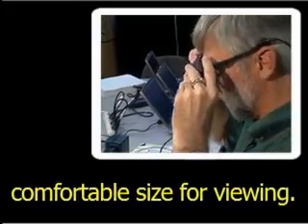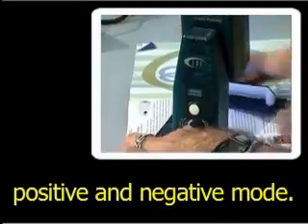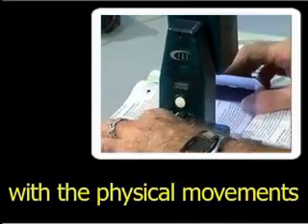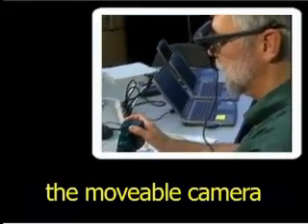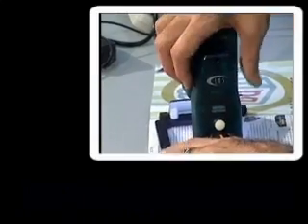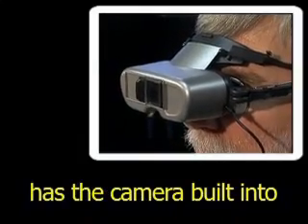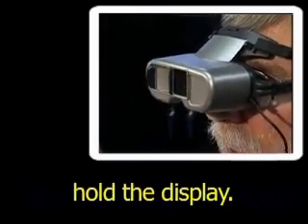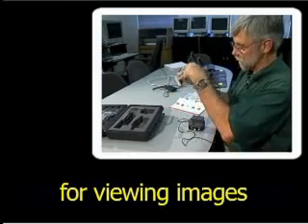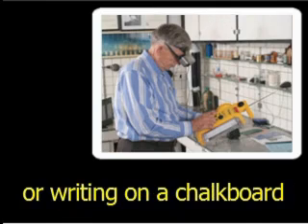With this type of magnifier, the image displayed can be enlarged until the user finds a comfortable size for viewing. It also provides a full-color mode as well as high-contrast positive and negative mode. At first, some users may experience difficulty with the physical movements required to operate the movable camera, but with practice they soon learn to manage this useful tool. The head-mounted display system shown here has the camera built into the goggles that also hold the display. This type of system is particularly useful for viewing images that are far away, such as museum exhibits, live performances, speaker presentations, or writing on a chalkboard in school.